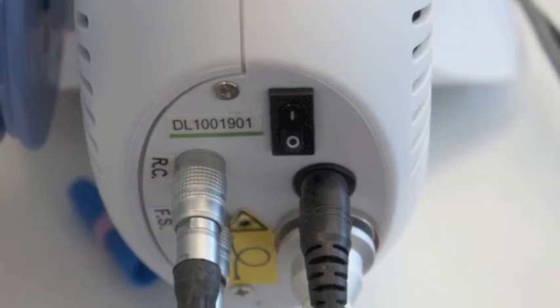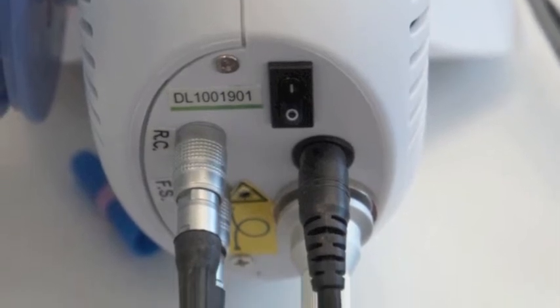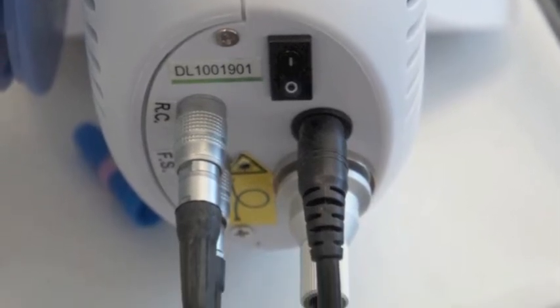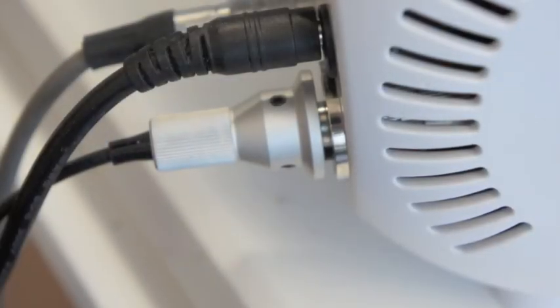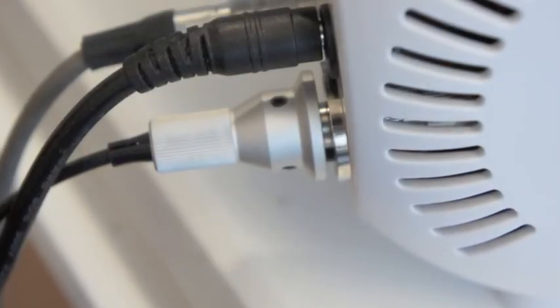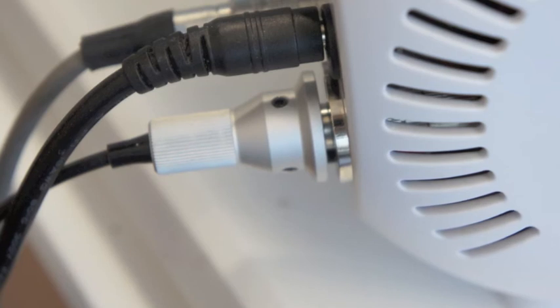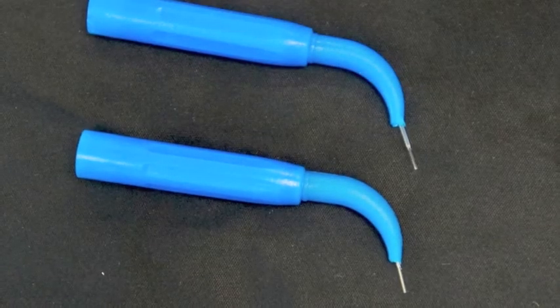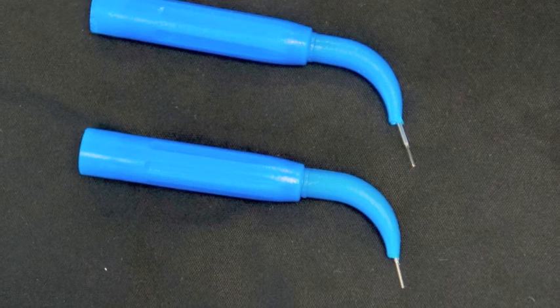When you're looking at your tips the first thing to make sure is that your fiber is firmly connected to the back of your unit. After this you want to make sure that it's firmly connected and then you look at the connection of the tips. Here we see the tips as they should look with the cannula and the tip connected firmly to it.